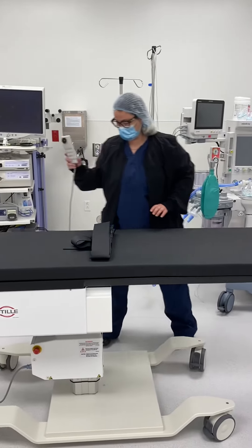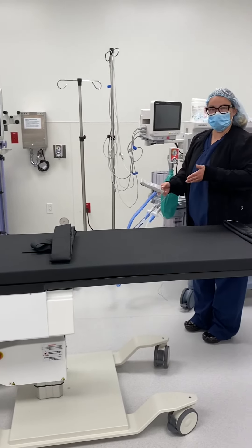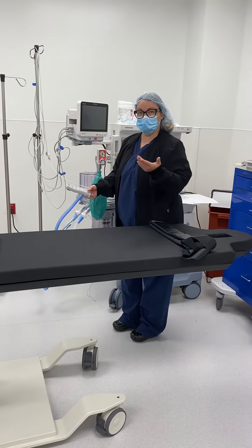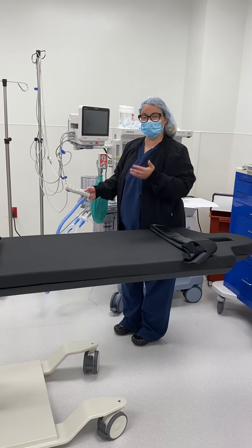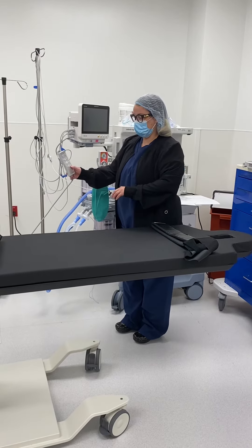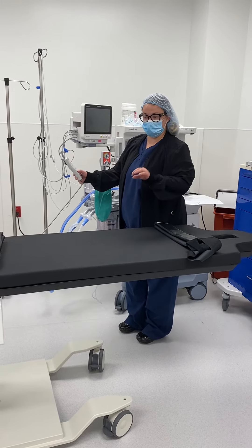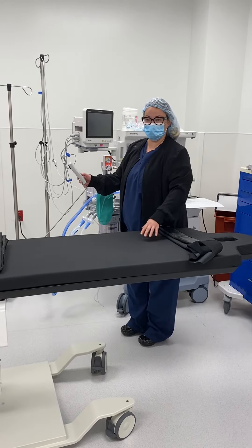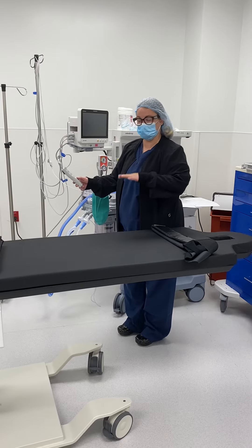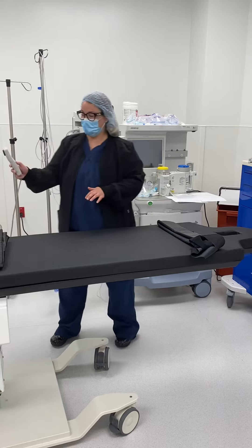For the adjustments for the bed, you're going to view this as if you were standing at the head of the bed, as if you were anesthesia. Sometimes circulators will help with the positioning. You'll find that the tilt specifically, which you tend to adjust most in these pain cases to create a level surface for the surgeon, is opposite if you're standing at the foot of the bed.